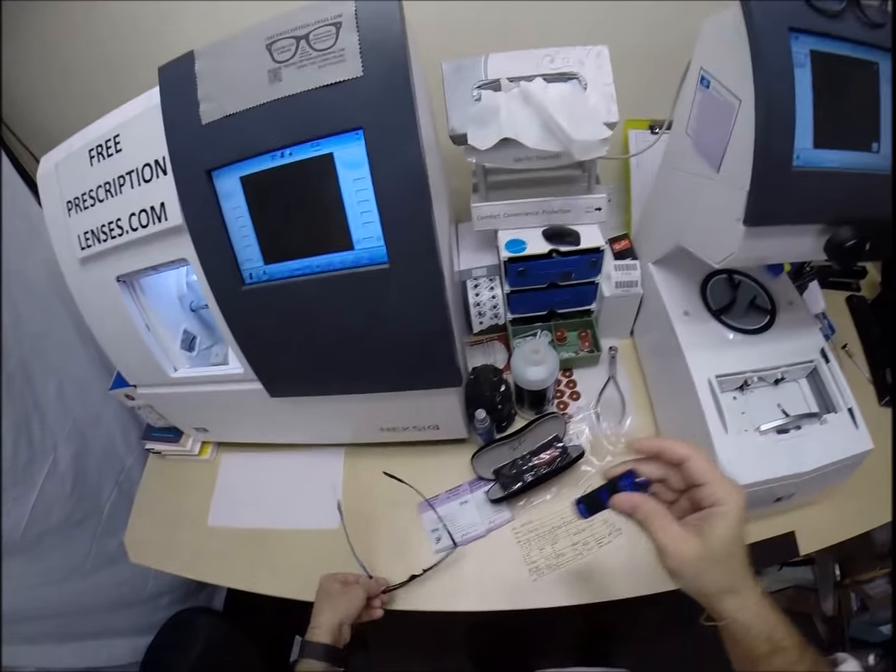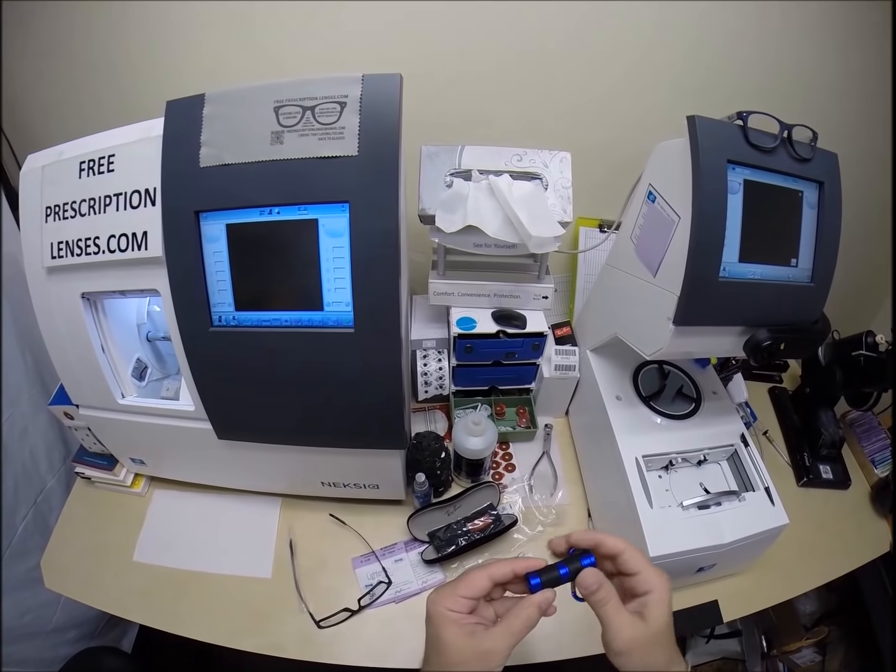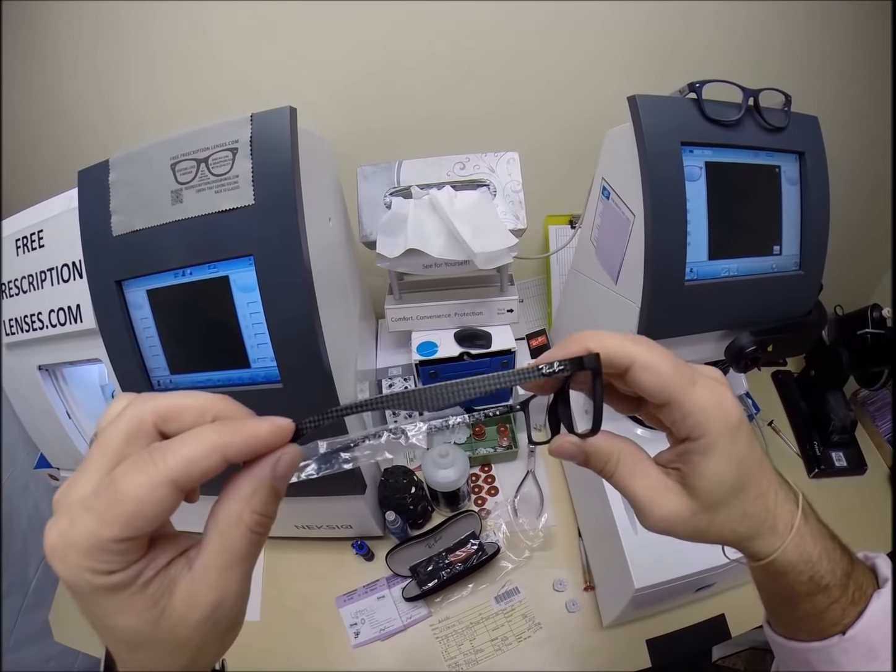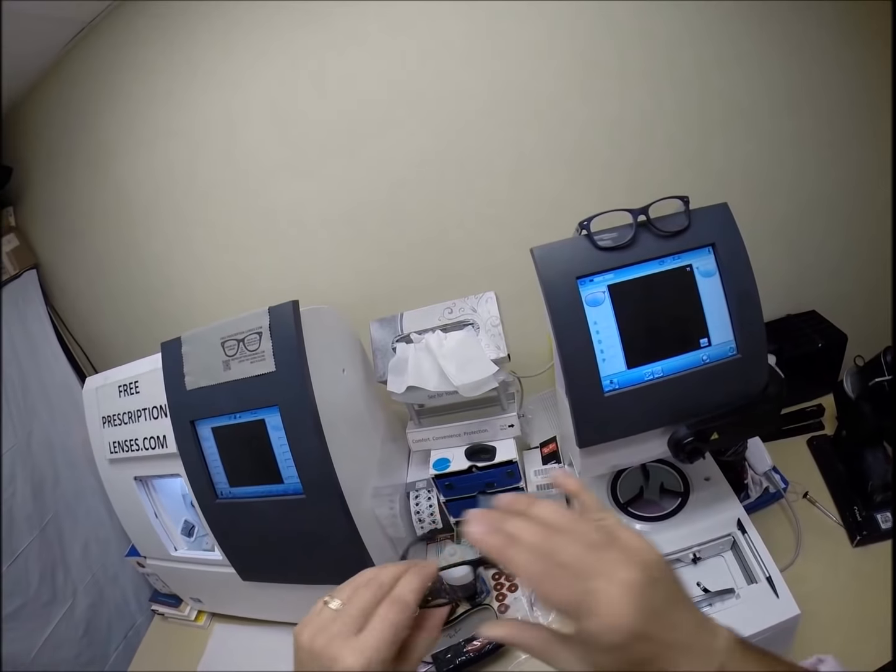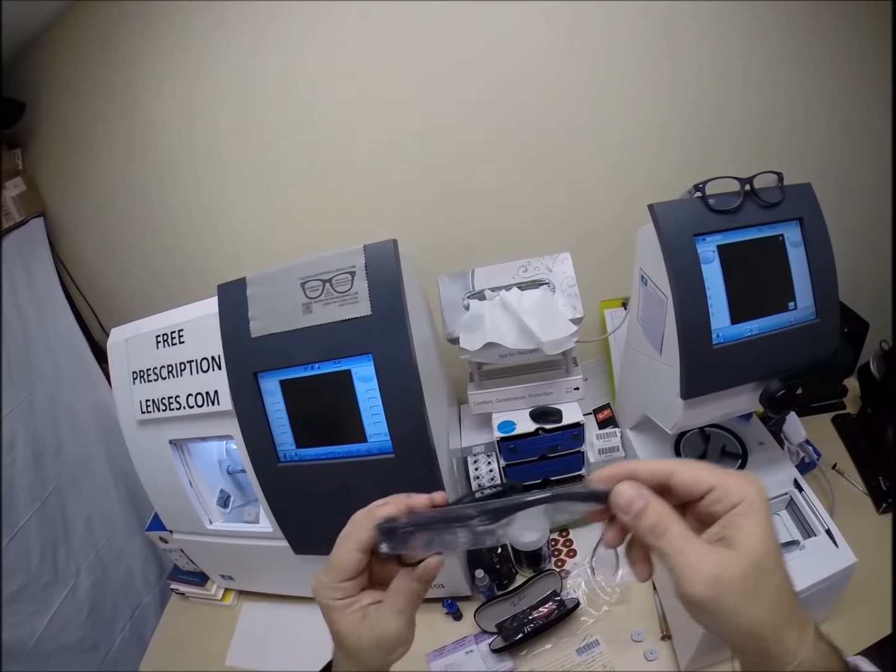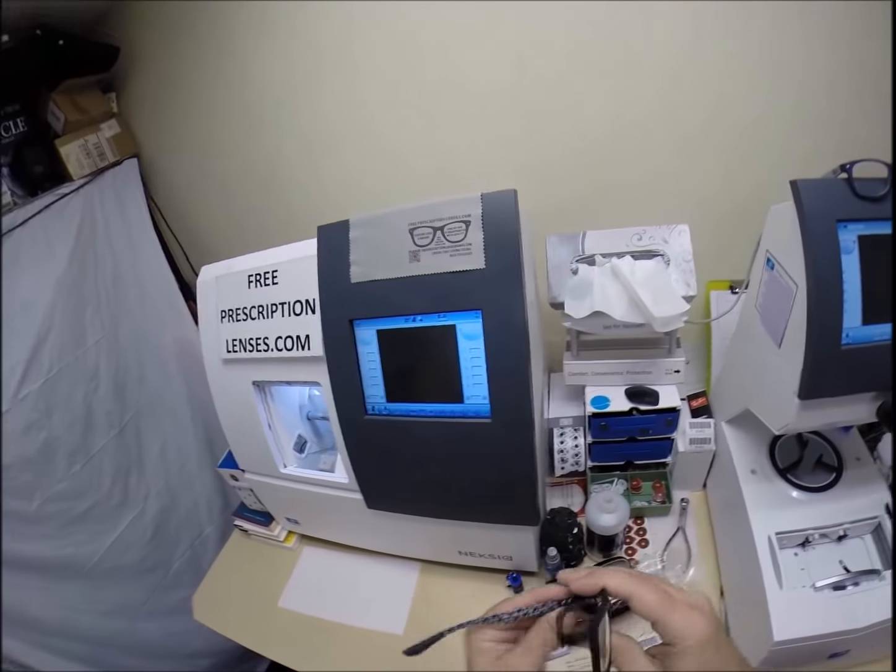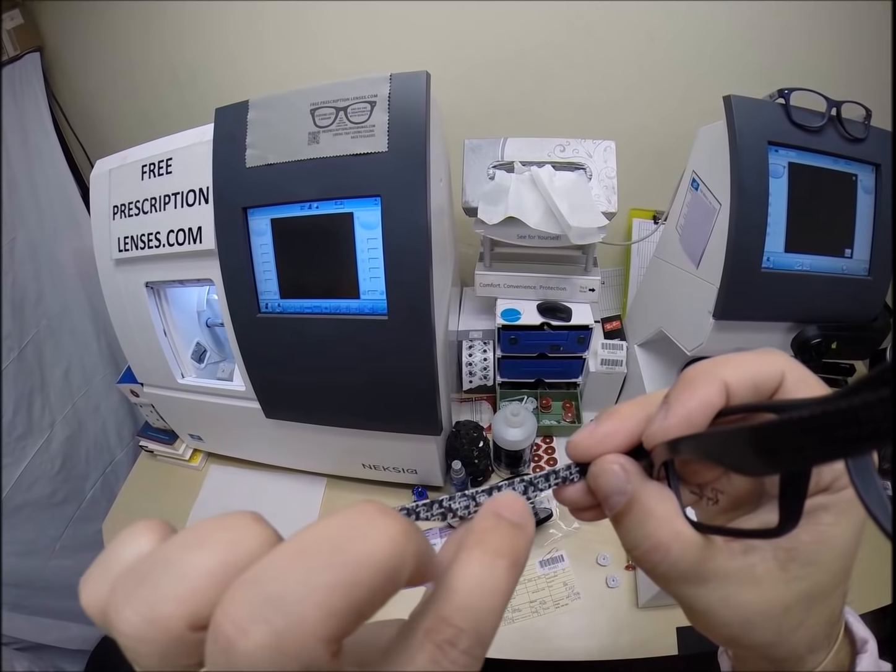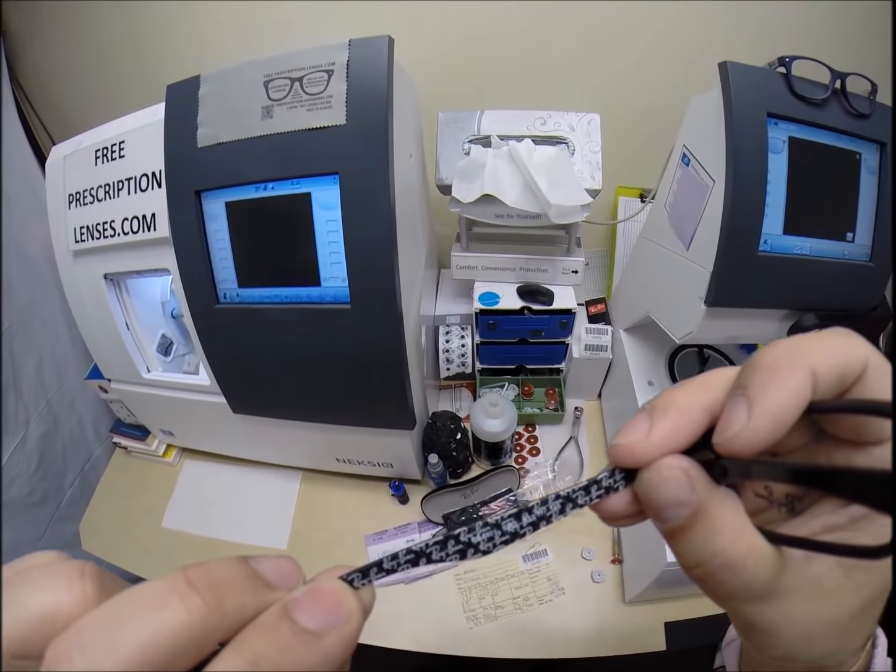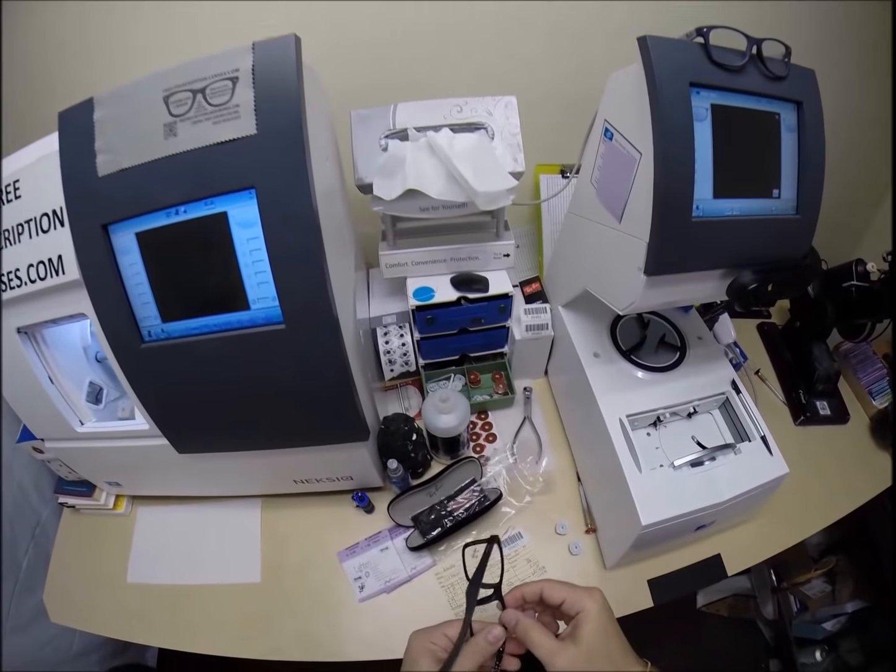That's the pattern on the case and the cloth. My flashlight died on me, time to go buy some batteries. But hopefully you can pick that up and see the pattern that is on there and of course comes with a little plastic sleeve on the left temple to protect the temples from rubbing together during shipping and of course I'm going to put that on there for you. In the print there it says Ray-Ban 8901 color 5263 in the 53 eye size. So let me go ahead and begin, I'm going to pop out the original demo lenses.